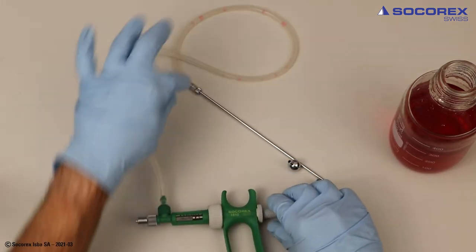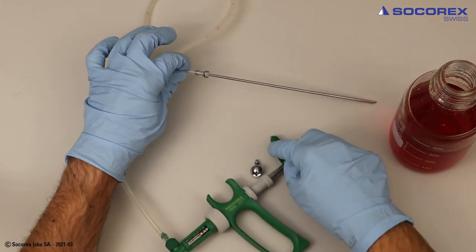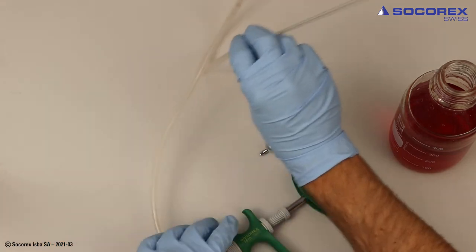Attach feed needle or sinker to the aspiration tube.